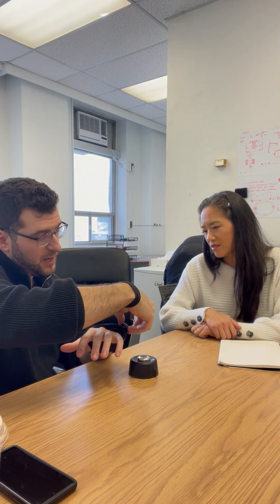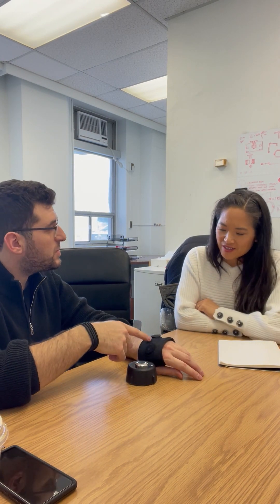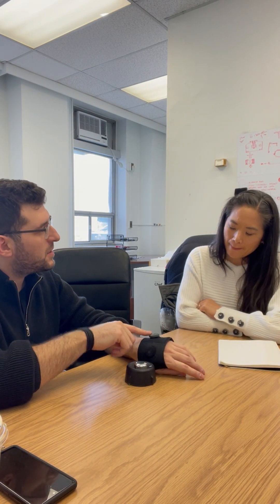This is a knob that allows for a custom fit on any hand. You slide your hand in — my hand is a large, this one's a small, so it's a bit tight. You click the knob and adjust the fit; when you rotate it, it starts to constrict on your hand and it's quite comfortable. When you unclick it, it goes loose so you can take it off. Our glove supplier does destructive testing and it's really robust — they use these for extreme sports like snowboarding, similar to snowboarding boots, so they're very durable.